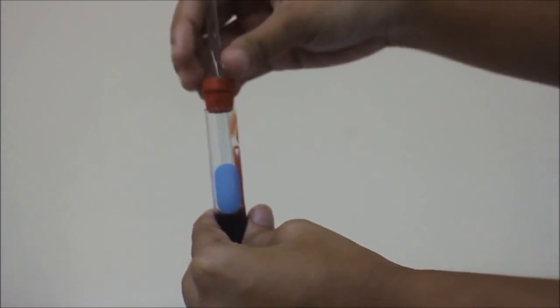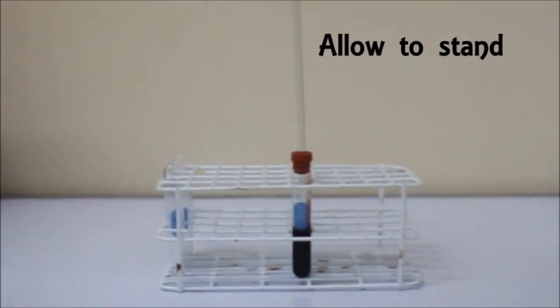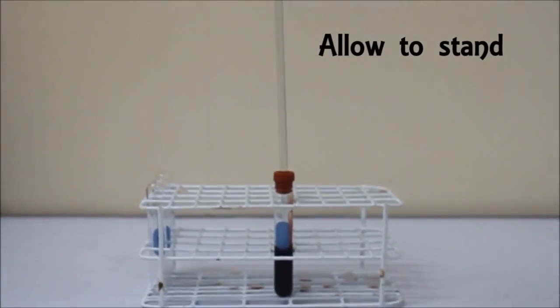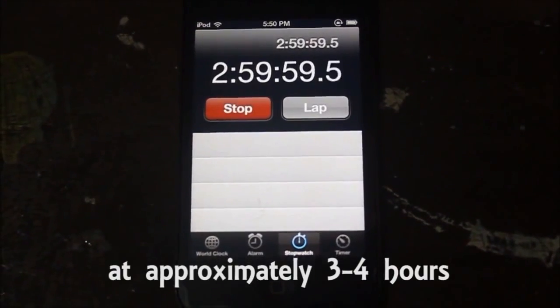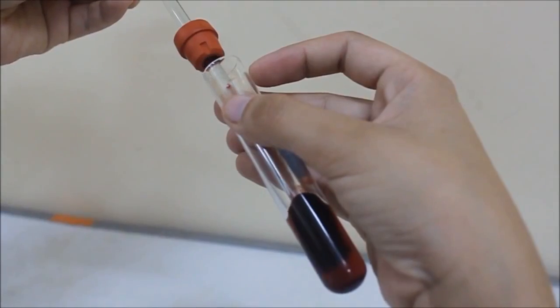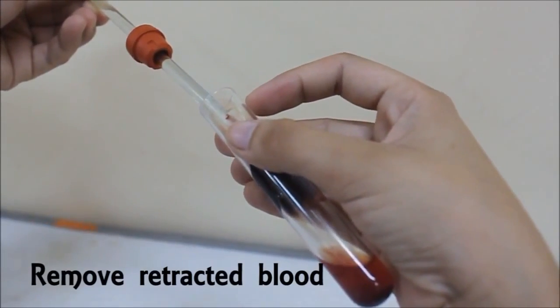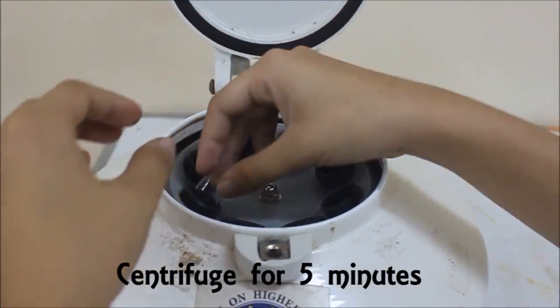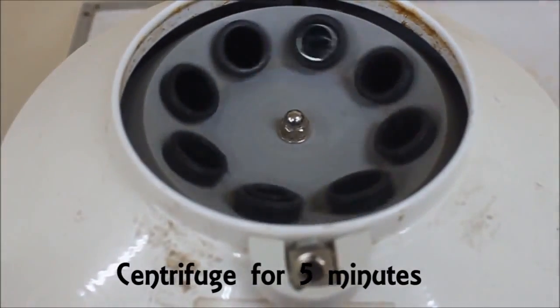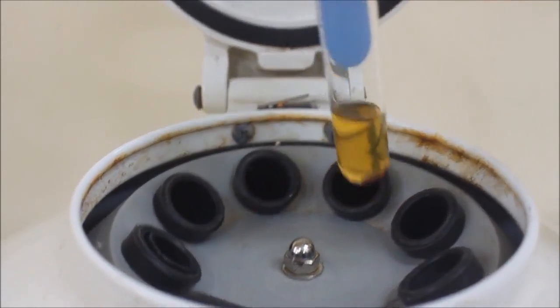Cover the test tube with the cork to which a stirring rod is fitted. Allow the setup to stand in a vertical position on a test tube rack. Once the blood has retracted or the blood clings to the stirring rod, remove the cork containing the stirring rod and the retracted blood. Centrifuge the remaining serum in the tube so as to eliminate the remaining cells. Measure the volume of the serum yielded.